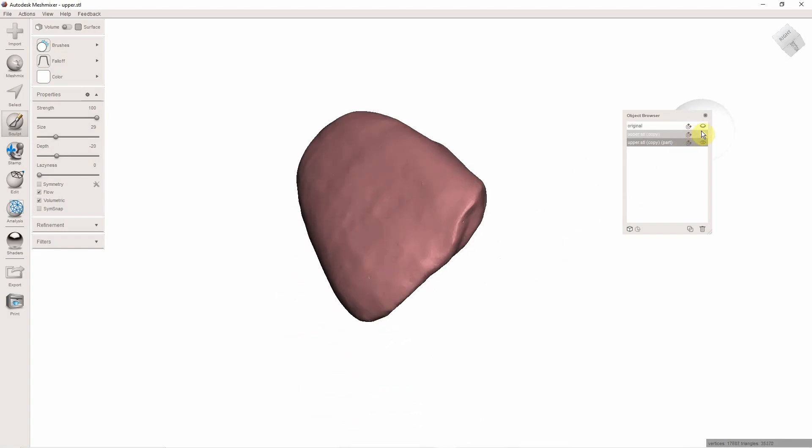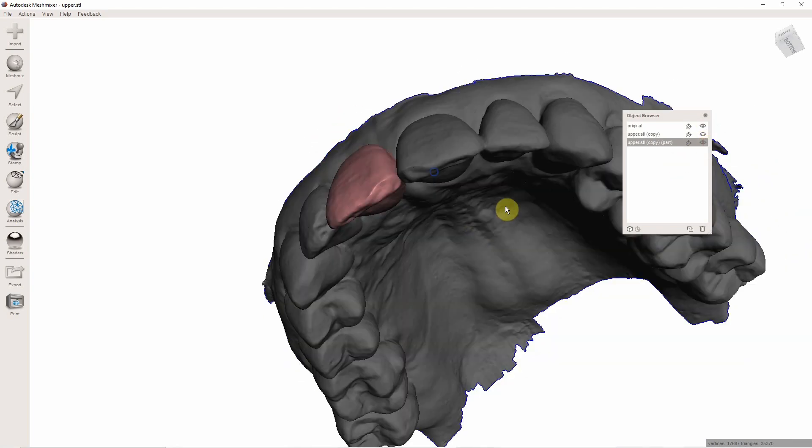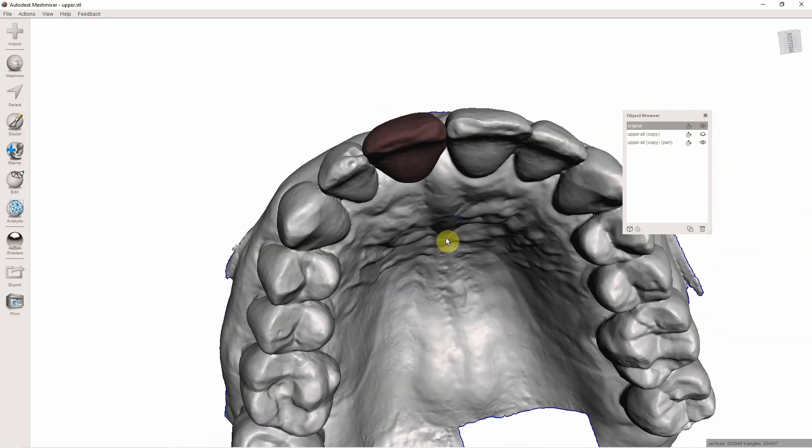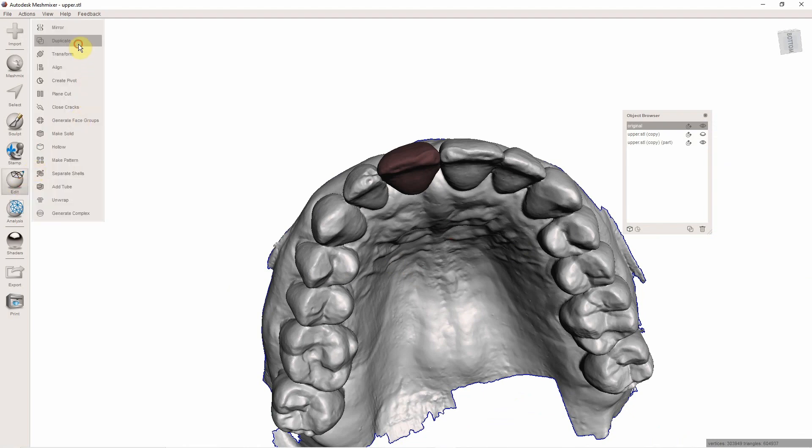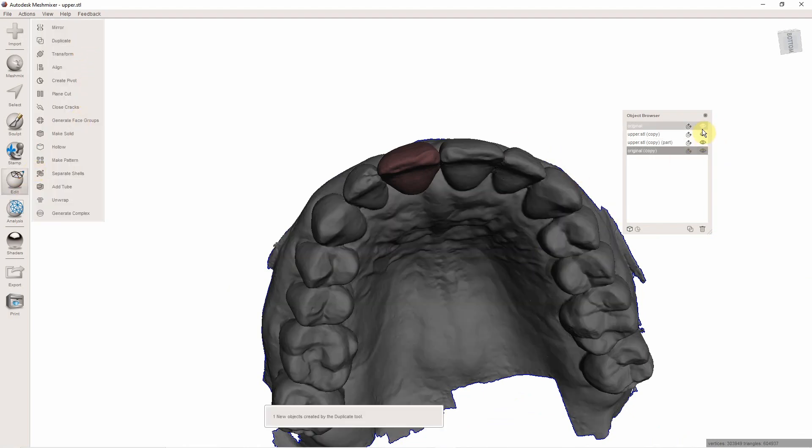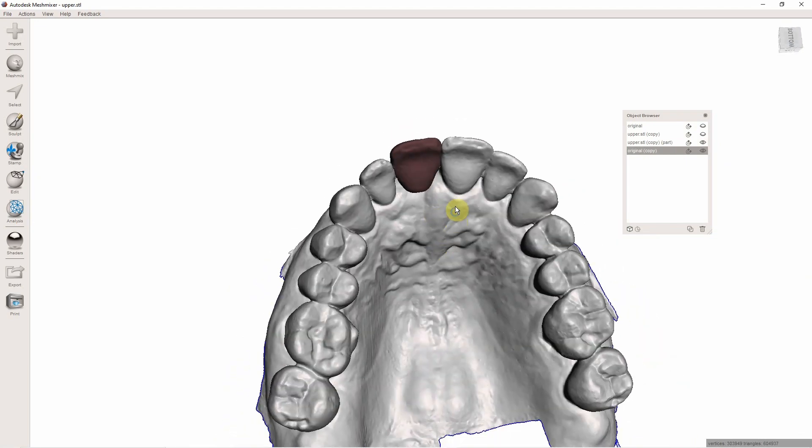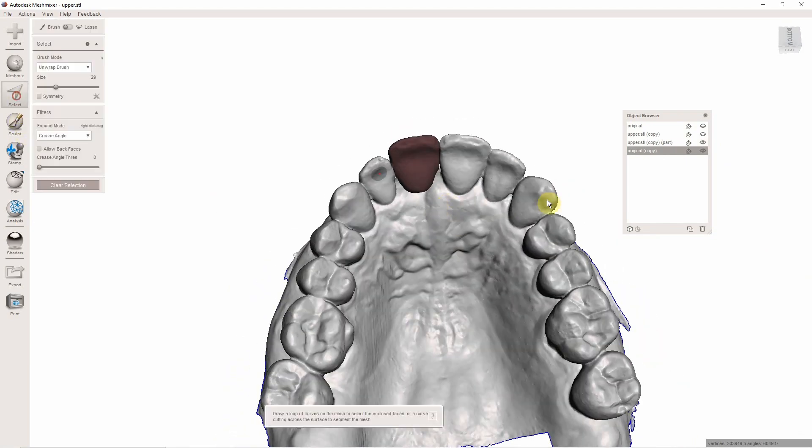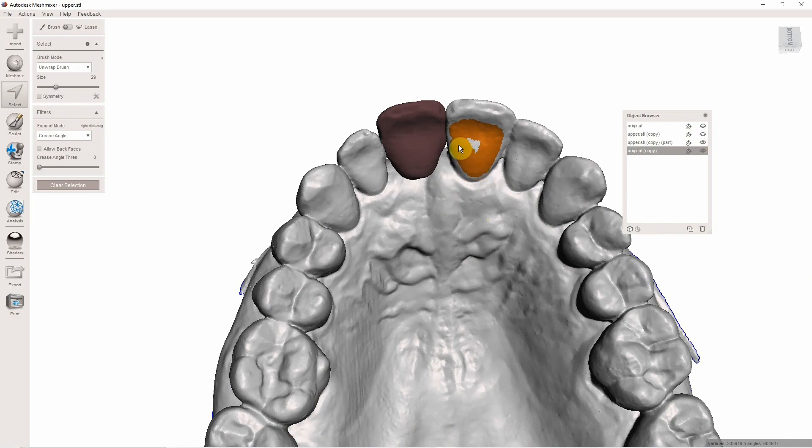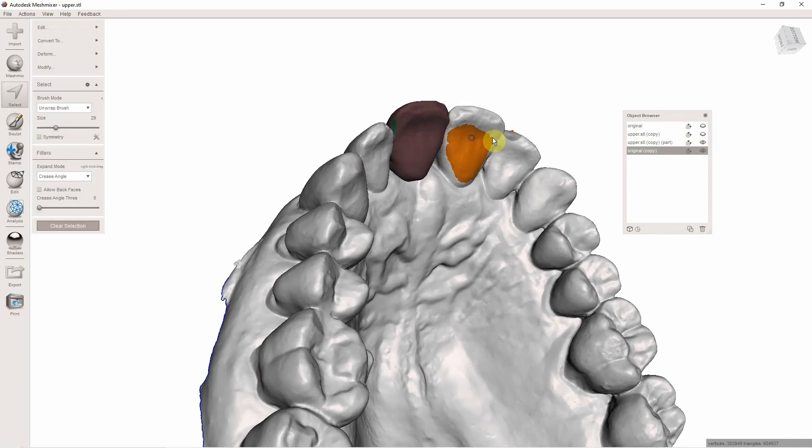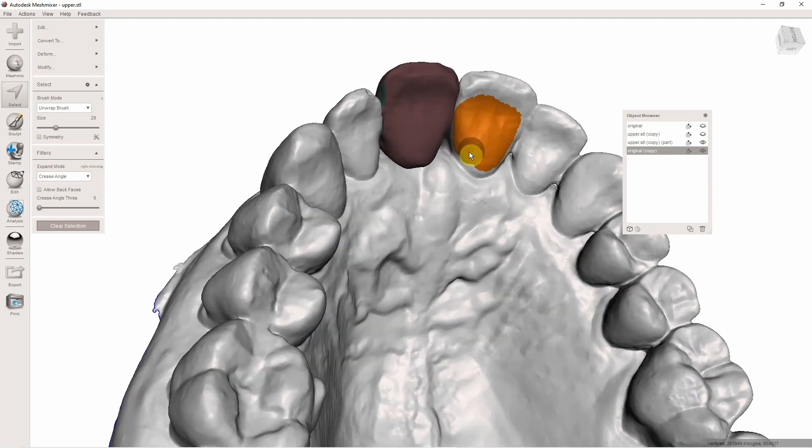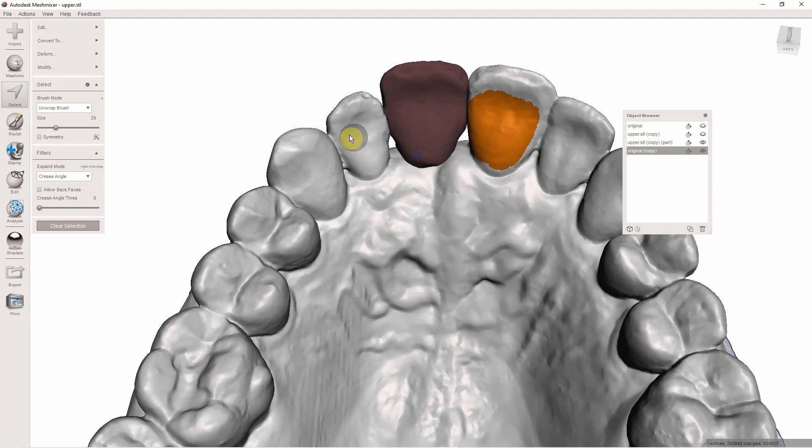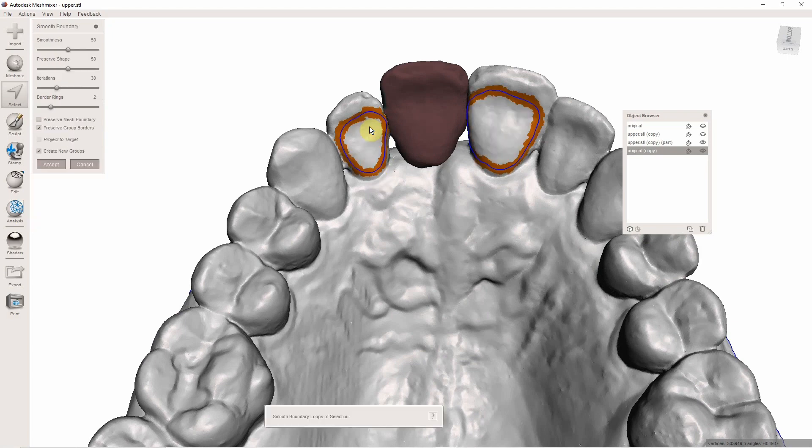Now we've got to make the wings. And to do that, I'm going to actually click my original model, my original, and hit Edit, Duplicate. I'm going to turn off my original. Now I have another copy and I'm going to come in here and hit Select. And let's just do two wings here. I'm going to come in here, extend your wings as close down as you can get there, and take into consideration occlusion. Like that. I'm going to hit B for smooth border. This is where everybody got tripped up.